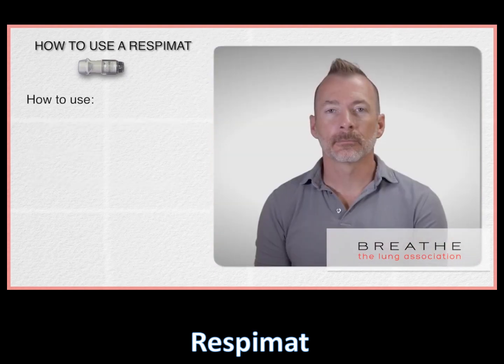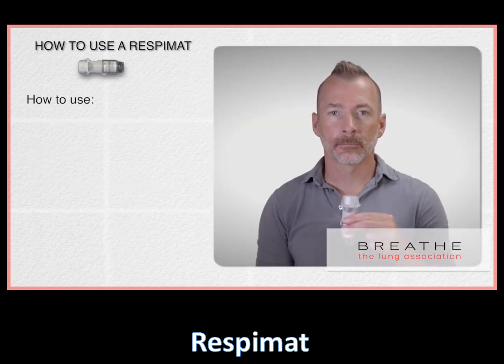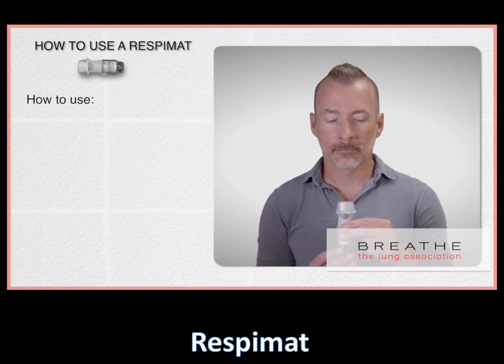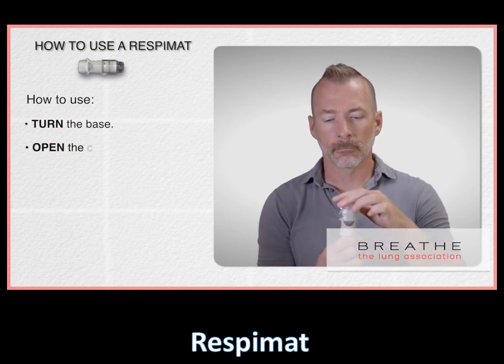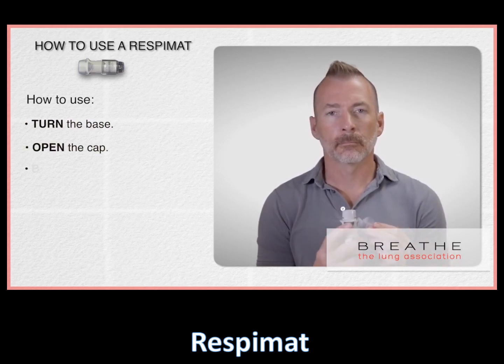Now to use the inhaler, follow these steps. Hold the inhaler upright with the cap closed. Turn the clear base a half turn in the direction of the arrows until you hear a click. Flip the cap open. Breathe out fully and slowly.